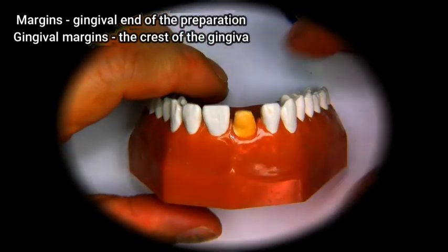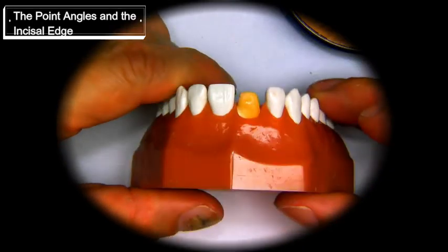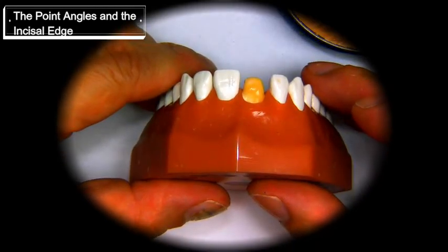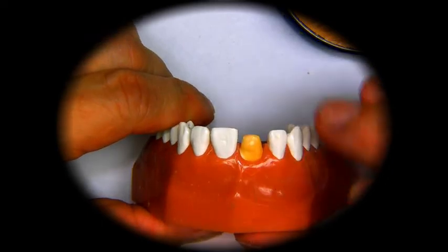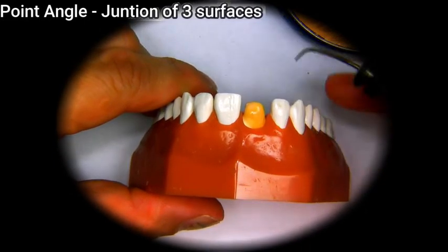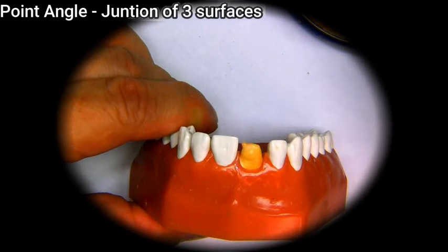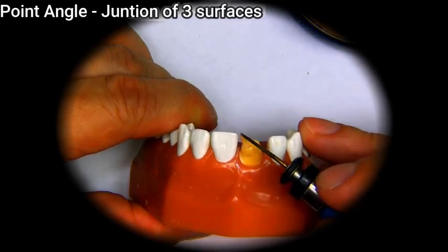The next step is to try to replicate the areas of the point angles. The central incisors are slightly longer than the lateral incisors — on an ideal case, the centrals are a little bit longer. So the point angles should match up to this central incisor. We will put a tiny bead of wax at a time until we reach that portion. You can blow on it to expedite the cooling of the wax.